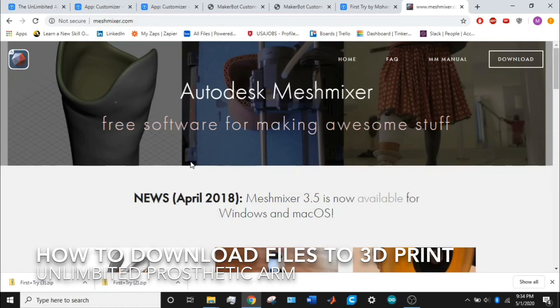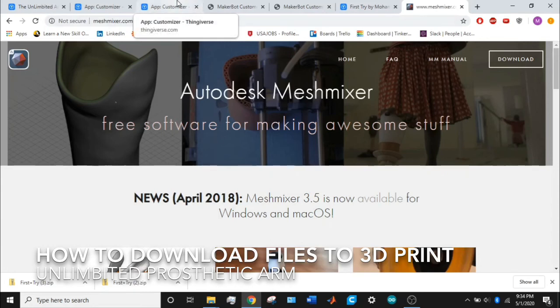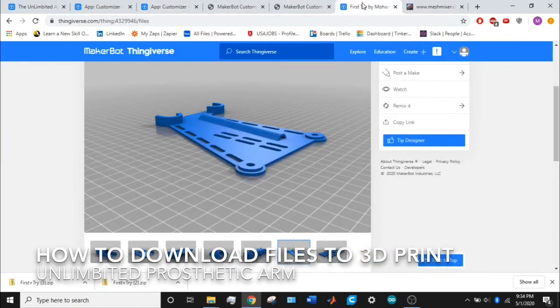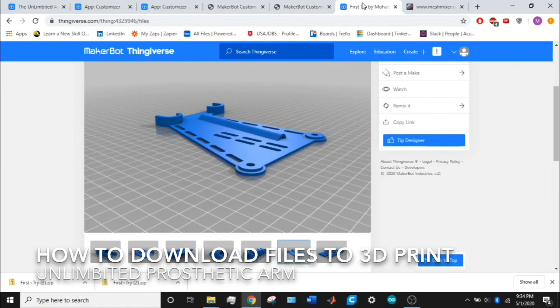Autodesk Meshmixer is free software. It's easy to use, and there are plenty of tutorials online that will teach you how to use it. This is the one that I used in case the STL files needed to be changed in size in order for them to print properly on my 3D printer. If you're running into problems with your 3D printer, those are pretty specific to your type of printer and you'd have to do some research on how to fix those problems.